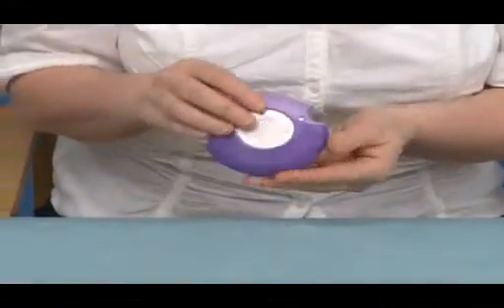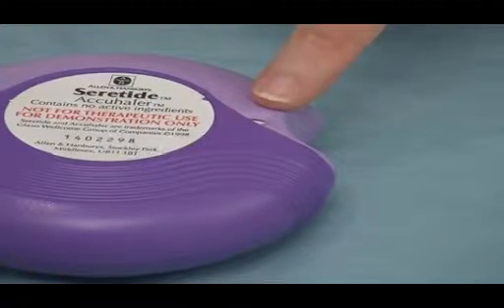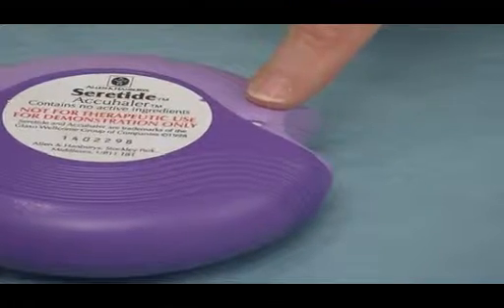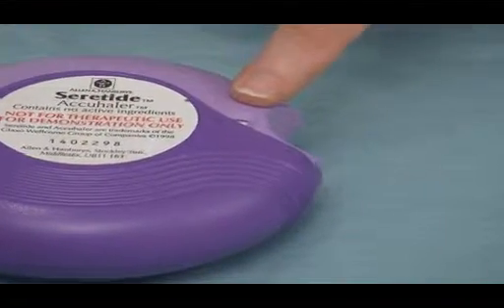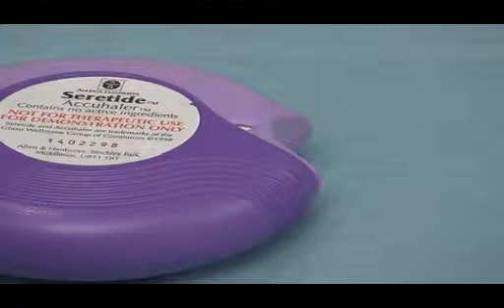The device is now ready to be activated again. It's important to remind patients that there is a dose counter on the Accuhaler. This starts at 60 and works down to 0. It's also important to remind the patients that the colour changes at 10 doses from black to red as a reminder for them to order a new prescription.